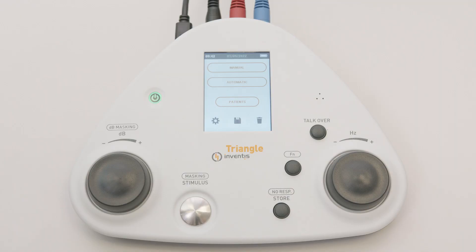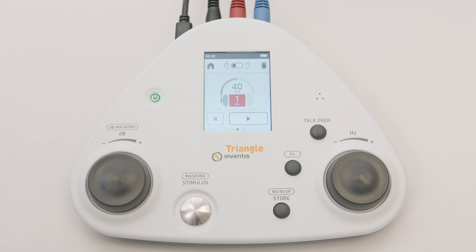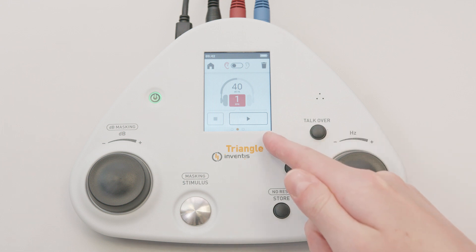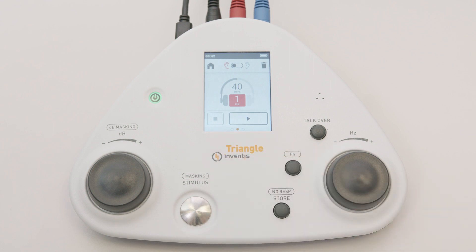To run an automatic pure tone audiometry test in air conduction without masking noise, press the automatic button on the Triangle's touch screen. The stimulated side is indicated at the top of the screen, while at the bottom there are two options: play to start the examination and stop to end it.